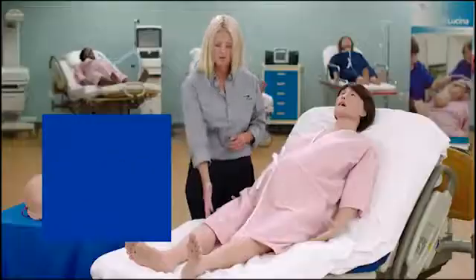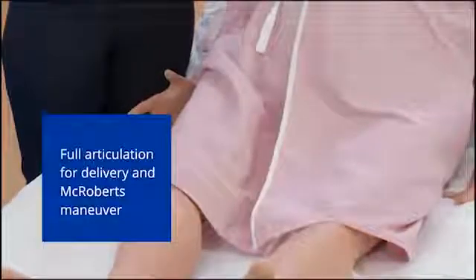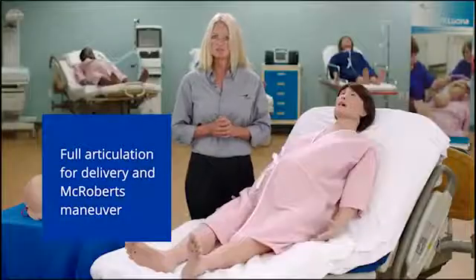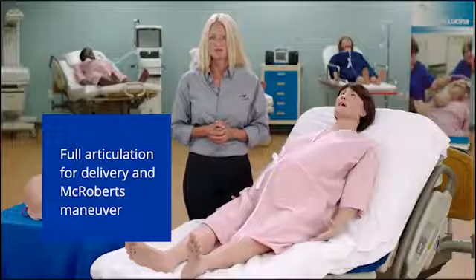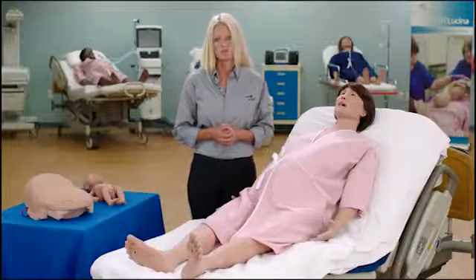Her legs have full articulation, allowing for numerous delivery positions, as well as the McRoberts maneuver for shoulder dystocia.